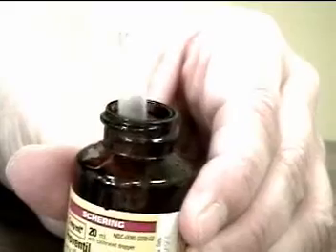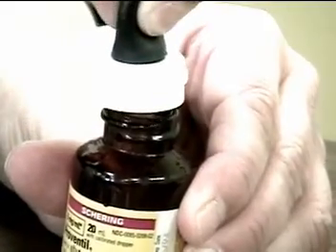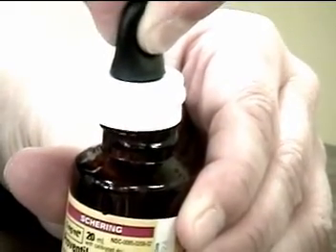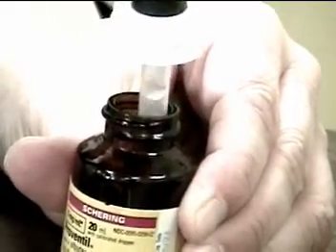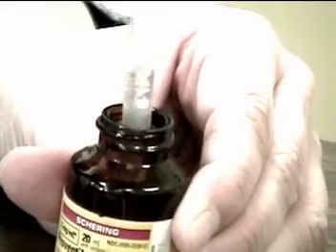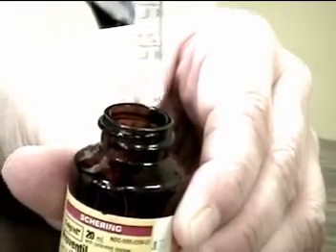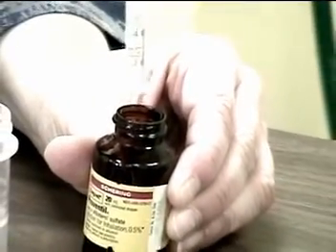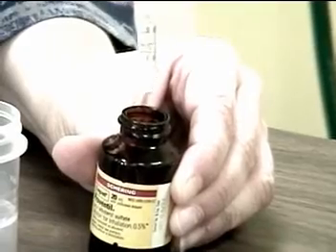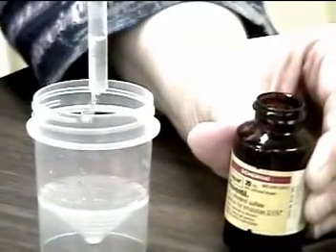I'm going to take the dropper, squeeze the top, and put it under the opening below the liquid level. I'm going to squeeze it until I can see the 0.5 milliliter mark.